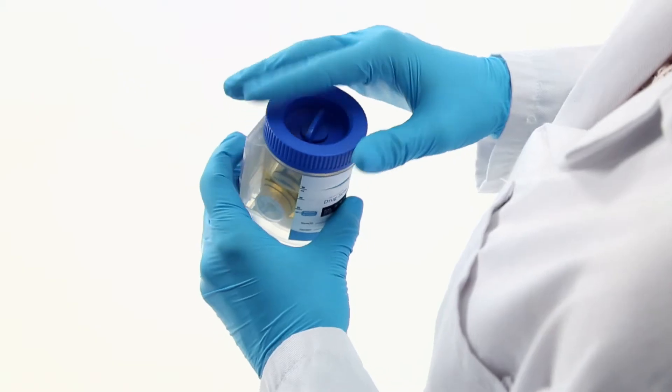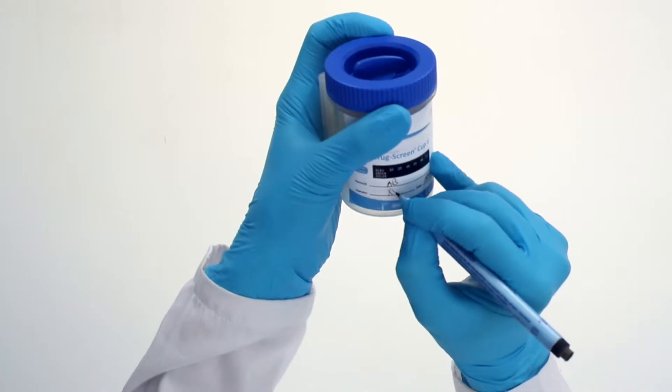Secure the lid before starting the test. Fill in the patient's details on the label.